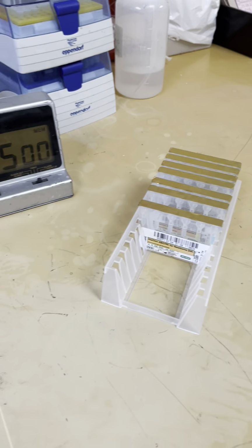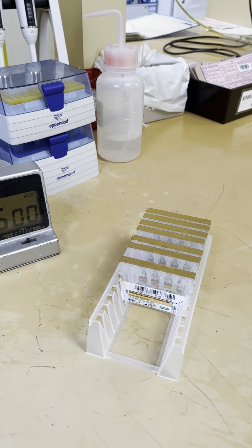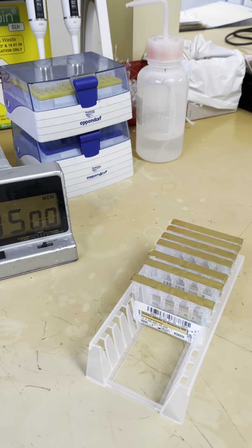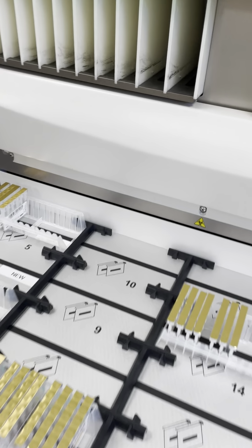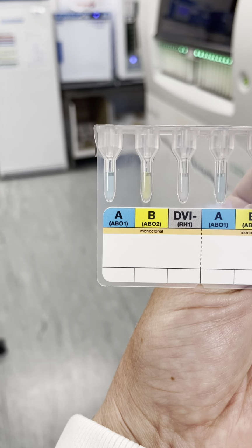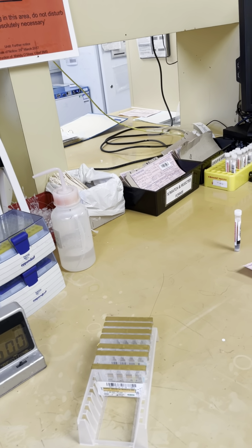So there's also a DAT well, as this can also detect if any maternal antibodies are bound to fetal red cells, in which case this could cause hemolytic disease of the fetus and newborn, or HDFN, which we'll also call it. We'll also have confirm cards, which literally is just the forward group of the patient. So these are mostly used in emergency situations, such as major hemorrhage.